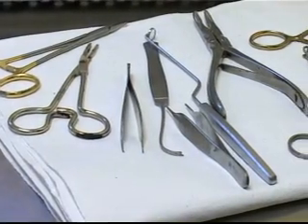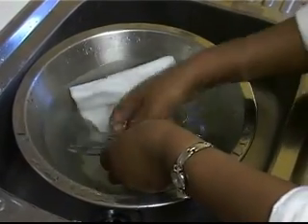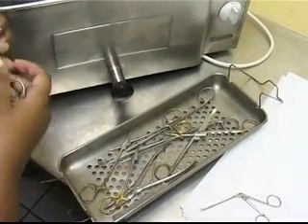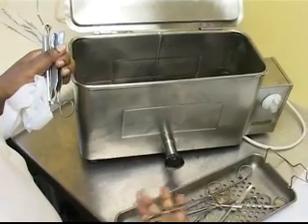If the instruments are not clean after boiling, make sure that the items are thoroughly cleaned before placing them in the sterilizer. When loading the sterilizer, make sure that the water can circulate freely around each instrument.